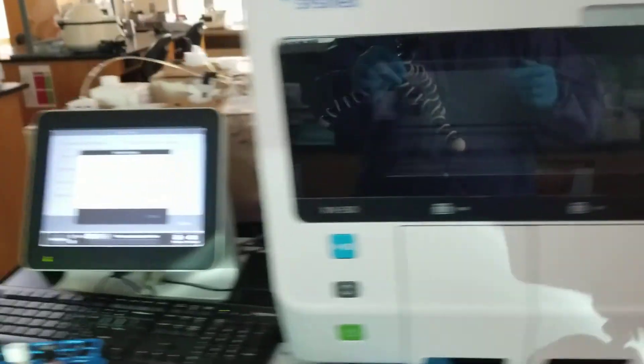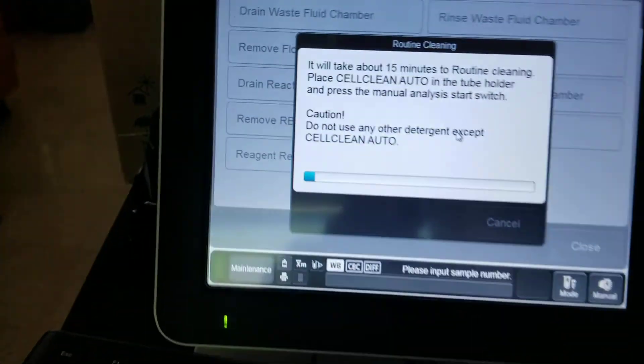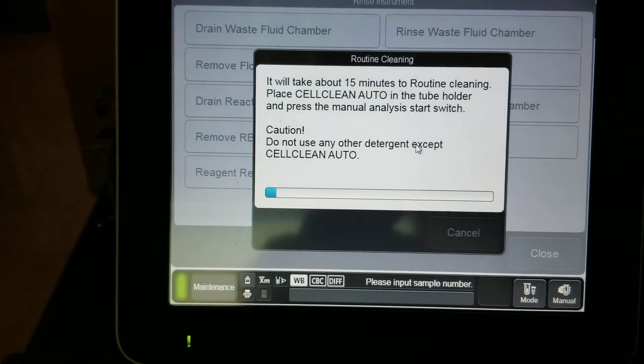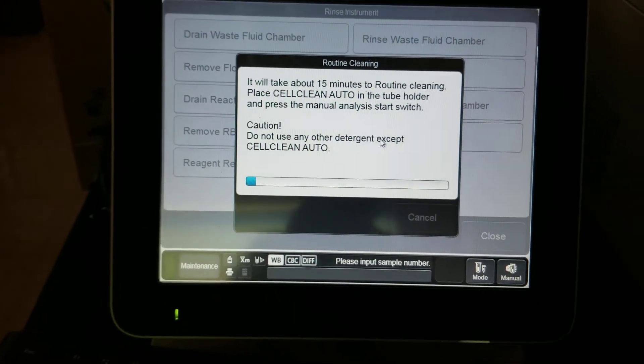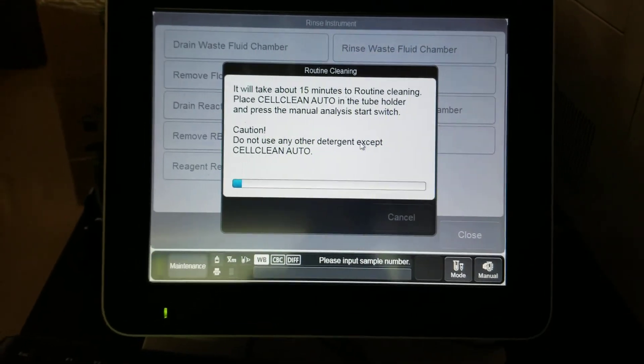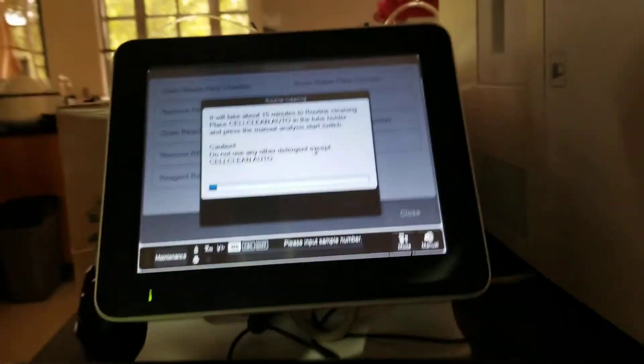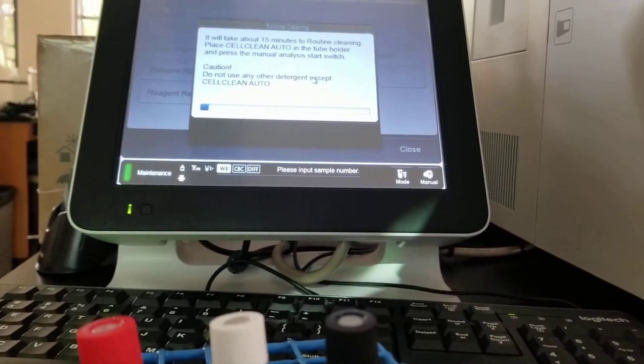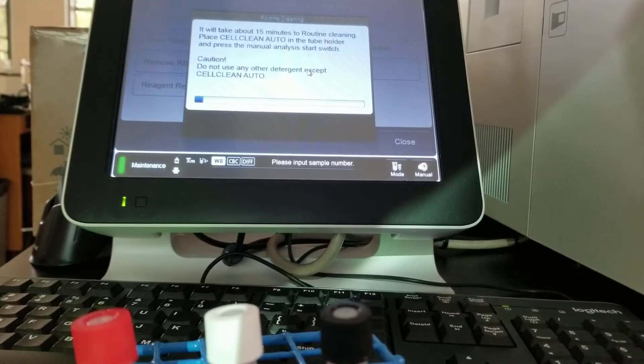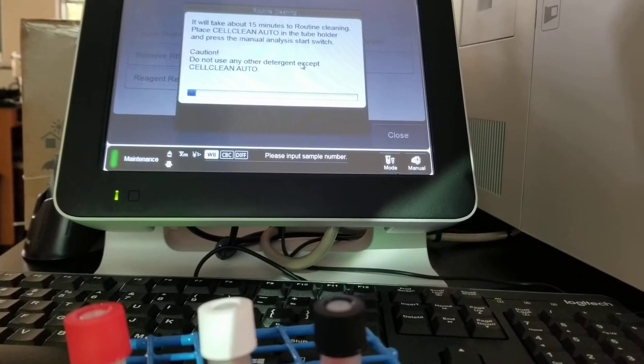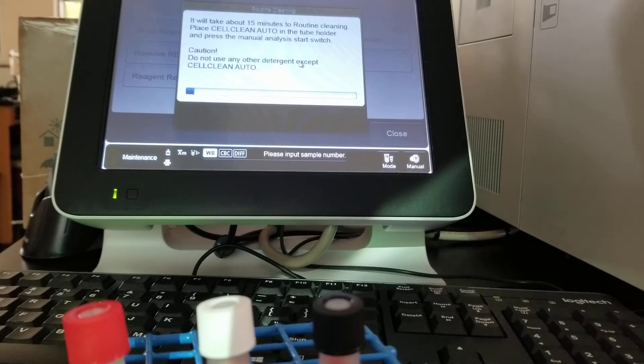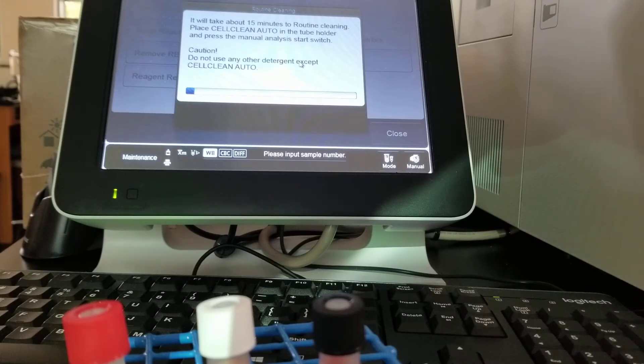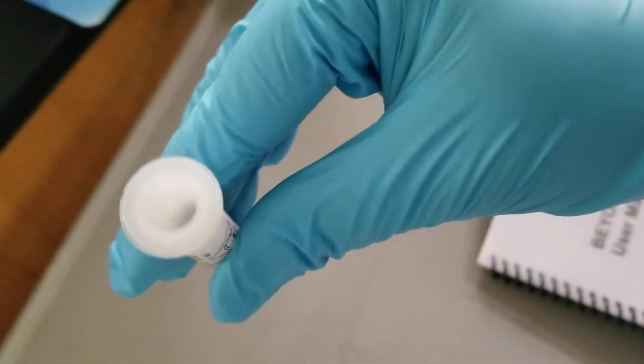It's going to show that it's in process and progress. And since it's going to take 15 minutes, I'm not going to sit here and show you what it looks like the whole time. But you always want to make sure that you remove it immediately after it's done. Pulling it in and scanning the barcode and close the door.